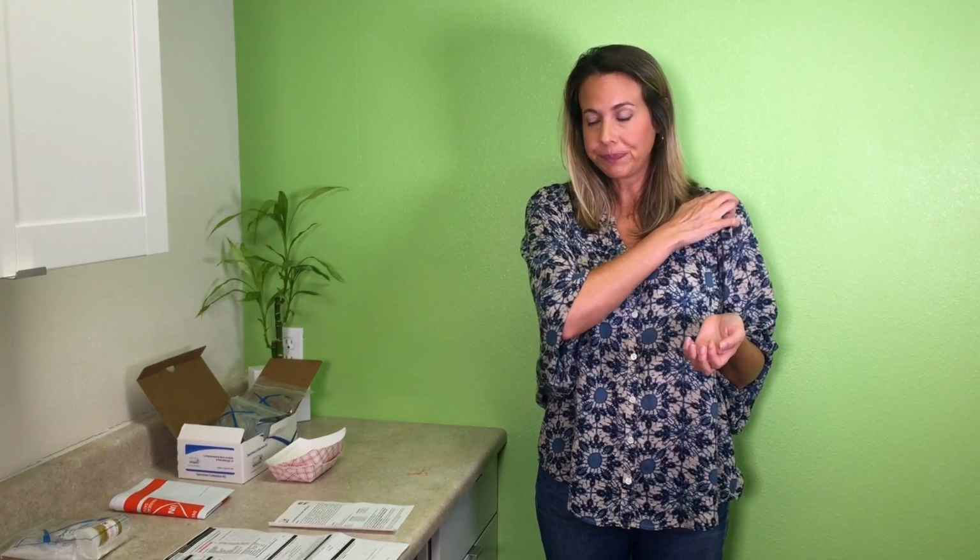If for whatever reason you're not sending it within 24 hours of the last collection, go ahead and put the room temperature vials that are in the box in the refrigerator. They can be in the refrigerator for up to 7 days before you send them off. This might be important if it's a holiday or a weekend, or if you don't have a bowel movement every day and it takes you up to 7 days to collect, that's fine. Just put them in the fridge.